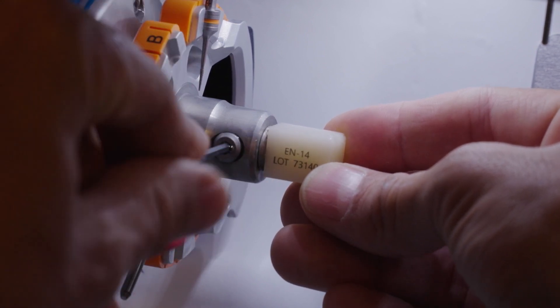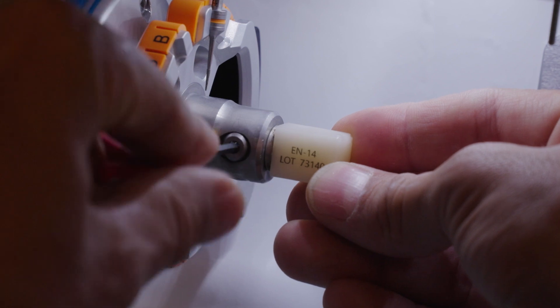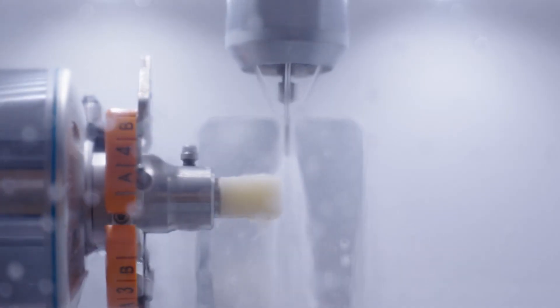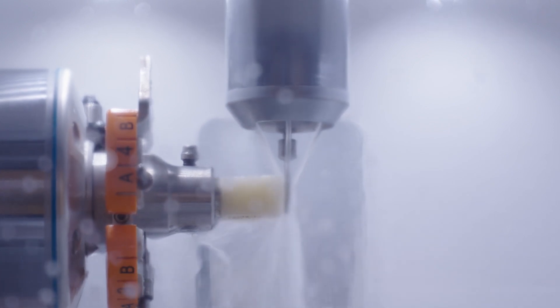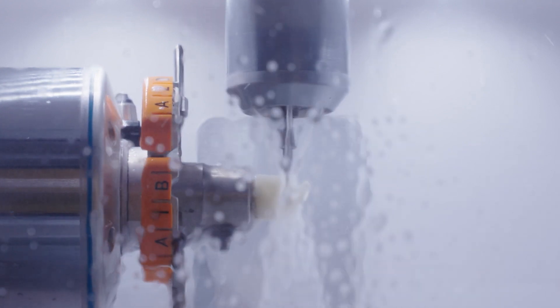A big advantage when milling the Edelweiss block is the low contamination of the milling cutters. Other composites very quickly glue the surface of the diamond cutters during removal and quickly deteriorate the result. Compared to other composite blocks, you can use the cutter up to 3 times longer, which means a significant cost saving.